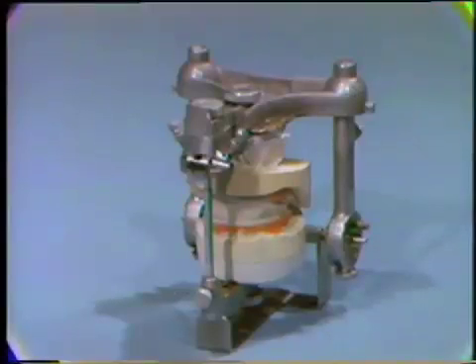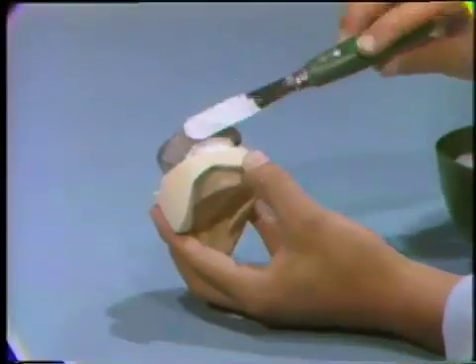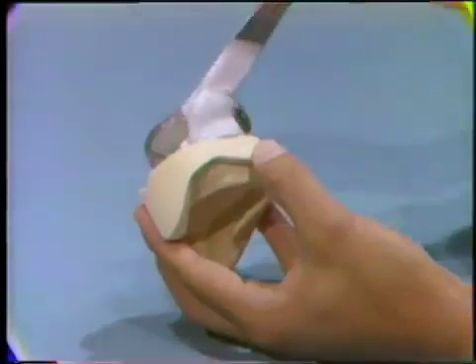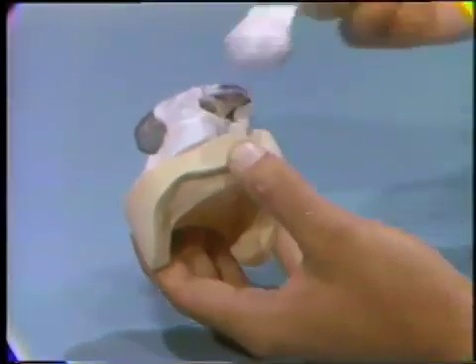Allow the plaster to set. After the plaster has set, remove the mounting ring and mandibular master cast from the articulator. Add a second mix of impression plaster to the mounting to reinforce and dress up the master cast.